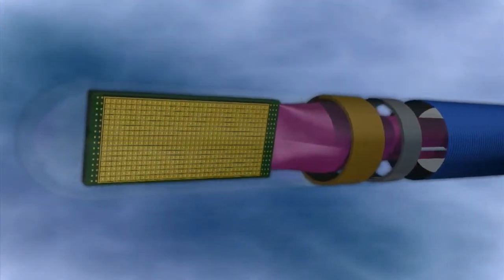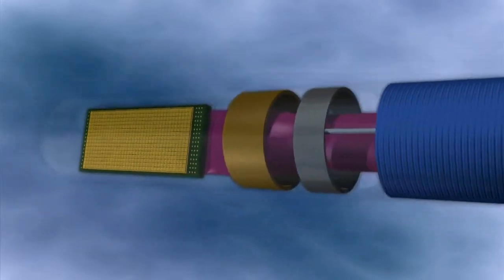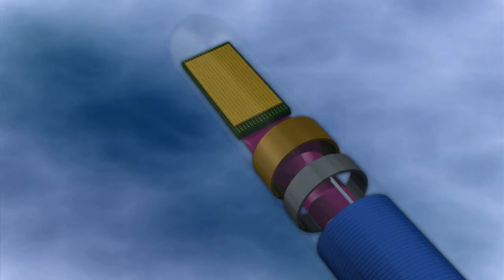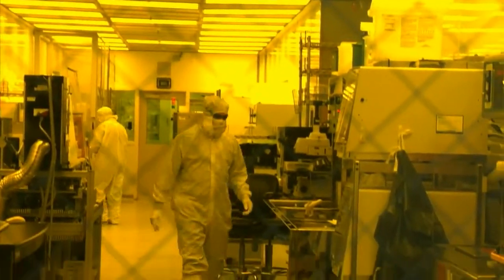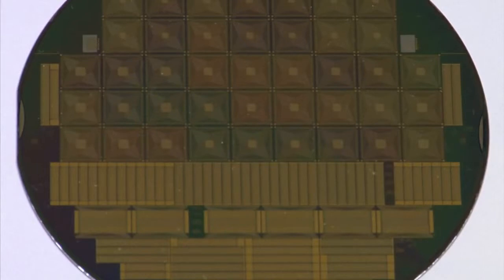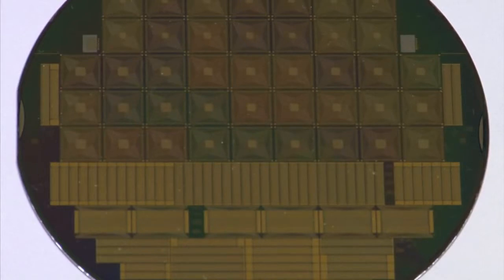By applying semiconductor-type manufacturing techniques, photolithographic processes are used to pattern the ultrasound transducer arrays and miniaturize the element size. This achieves higher element density within the catheter to produce the matrix arrays required for 3D imaging in a device as small as 3 to 4 millimeters in diameter. These arrays are manufactured in RTI's clean room on silicon wafers, where each wafer can contain several hundred transducer arrays and each batch can yield thousands of arrays.